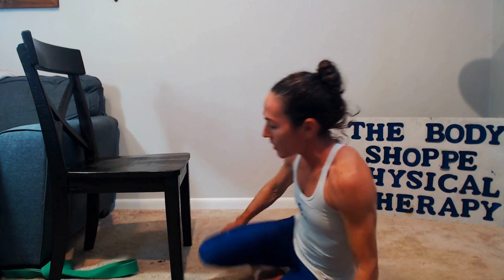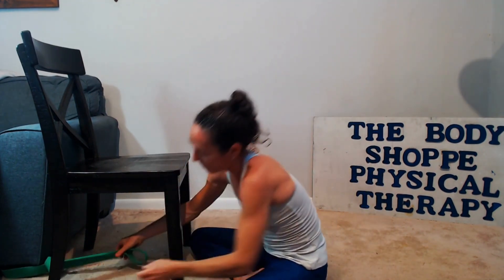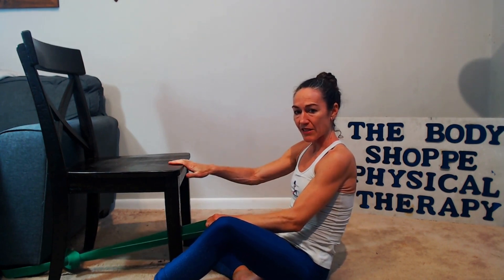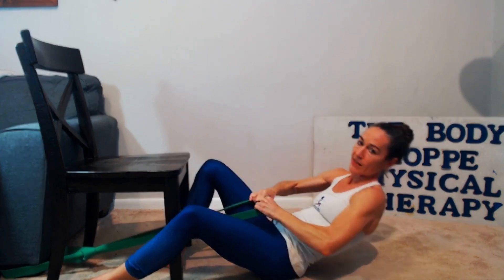The hardest part is getting into the position. Once you have this wrapped around the foot of the couch, you can also do this outside — if you've got a bed with a stable leg to wrap around, on a porch, or outside on a soft mat with a beam that's strong enough to hold. Then I'm going to lie onto my back, pull the band backwards, and put one leg through first.